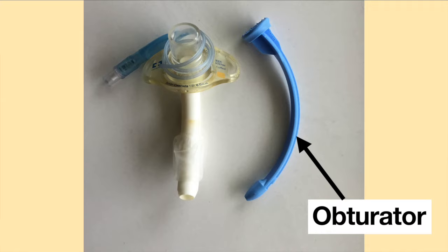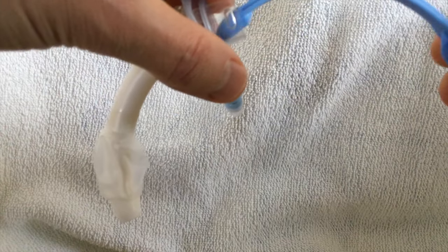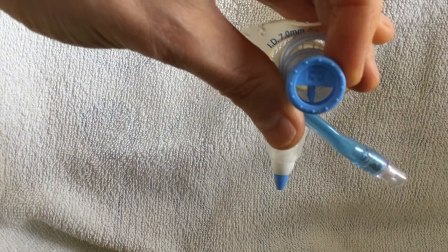With each tracheostomy tube, there should be a slender piece of plastic which can fit into the shaft of the tracheostomy tube. This is called an obturator. The obturator is needed to insert the tracheostomy tube into the airway. Once the tracheostomy tube is inserted, the obturator should be removed.